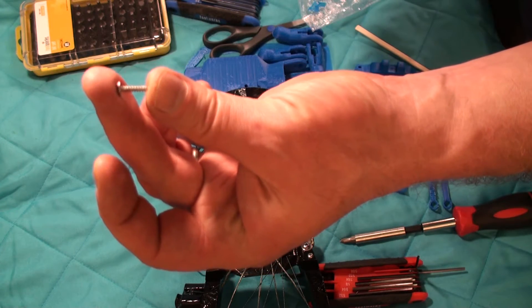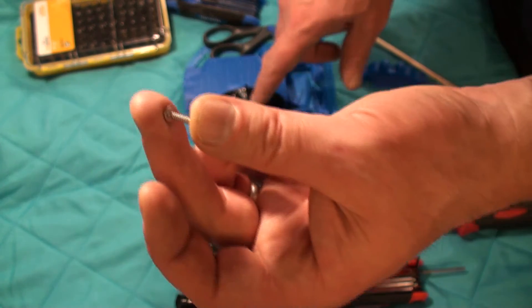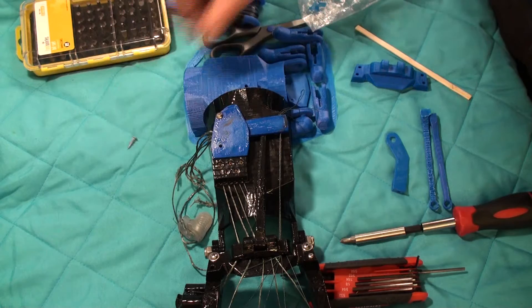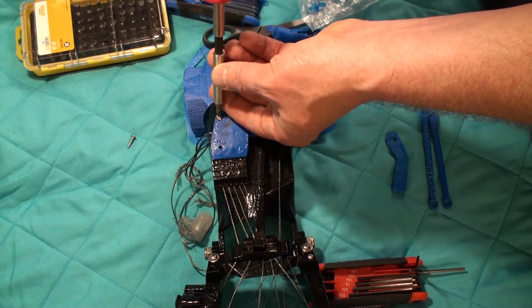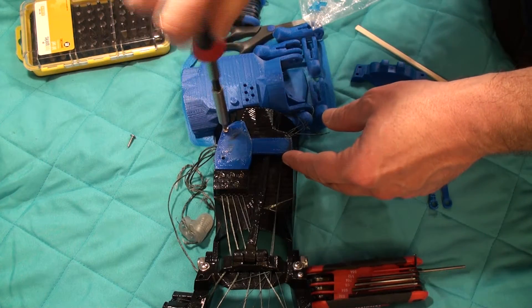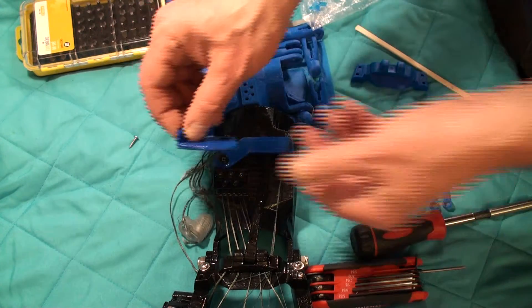I'm going to use a number four, maybe five-eighths of an inch. Now this hand was printed at about 160%, or 1.58 actually, but you'll get the same measurements at 160 or 1.6 if you like.